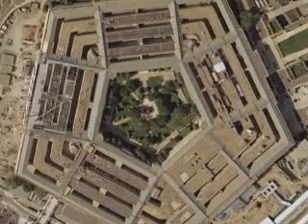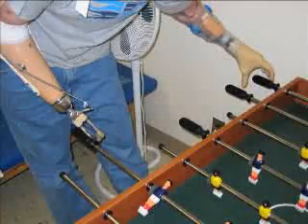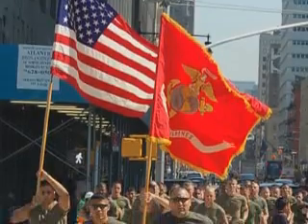In 2005, the Defense Department's Experimental Research Wing, DARPA, created a program to make the next generation of prosthetic arms for returning soldiers who had lost limbs in combat. One contract went to DECA Research, headed by Dean Kamen, inventor of the Segway.